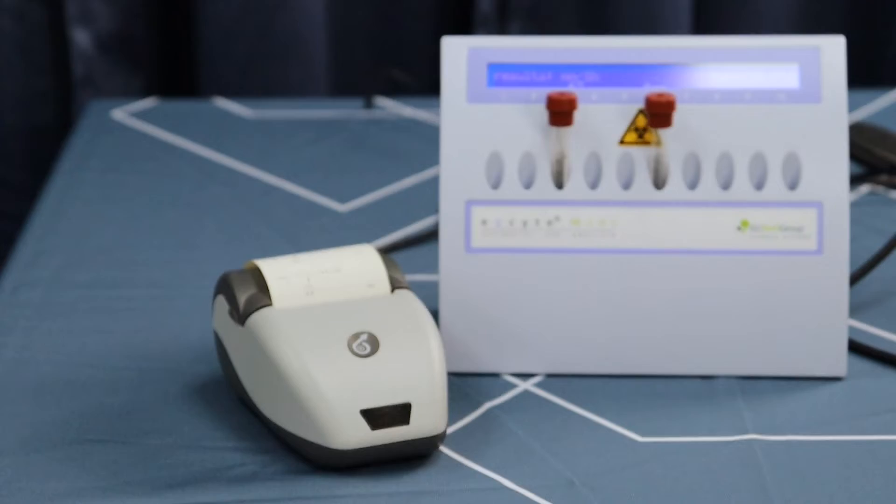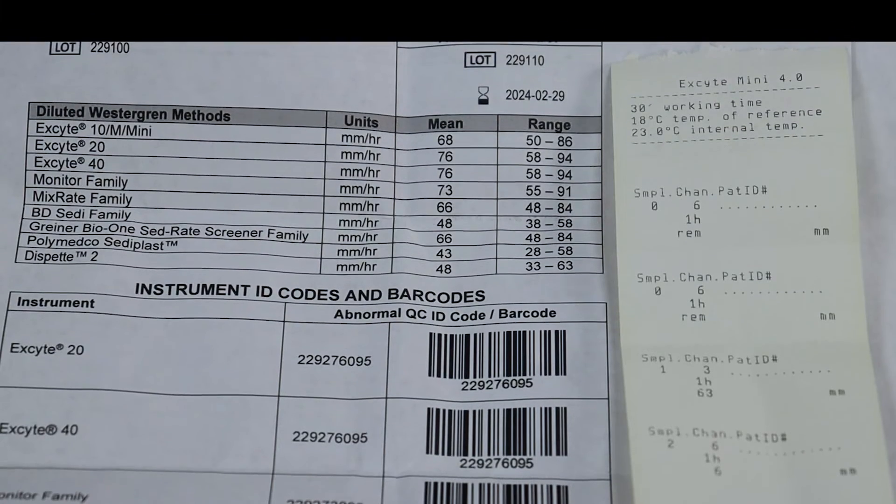Once you've run the QC controls and the printed results are in range, you're ready to run patient samples.